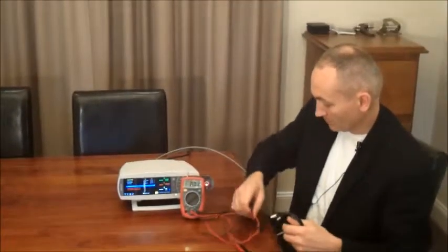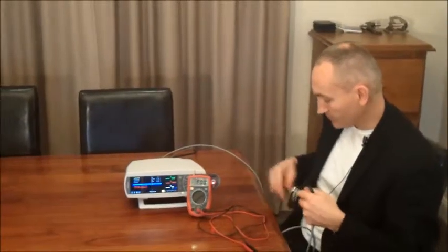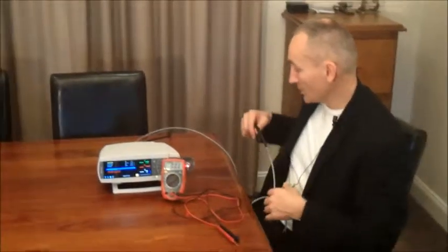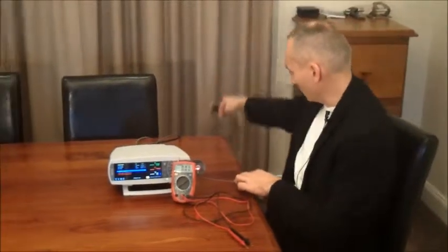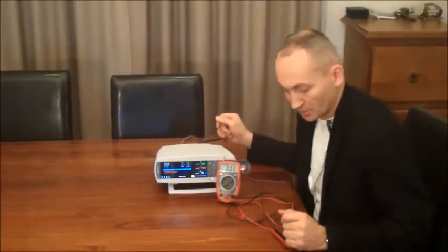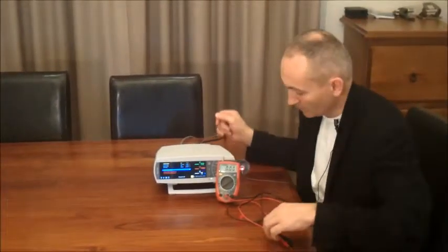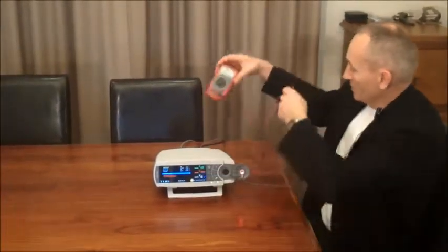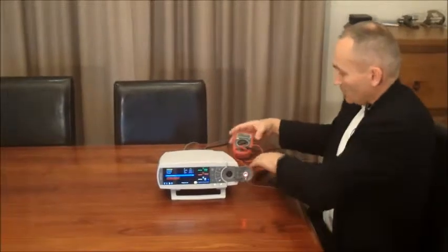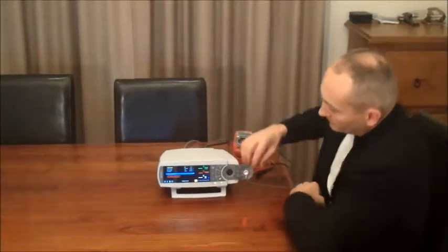So once you've fixed those points in, you can then test the interface. Let's just put that aside, assume that's plugged into our PSG DC interface box. So let's check them.